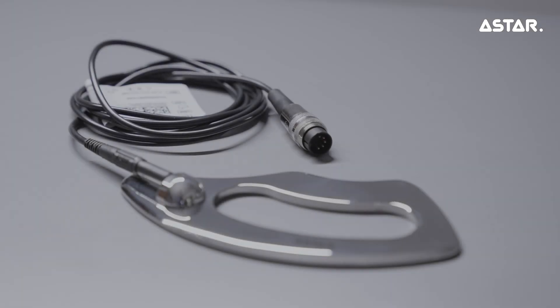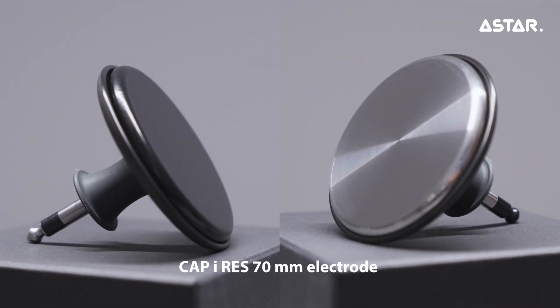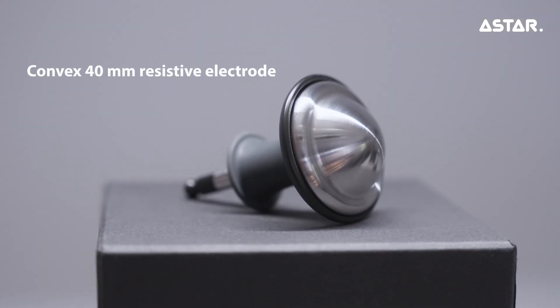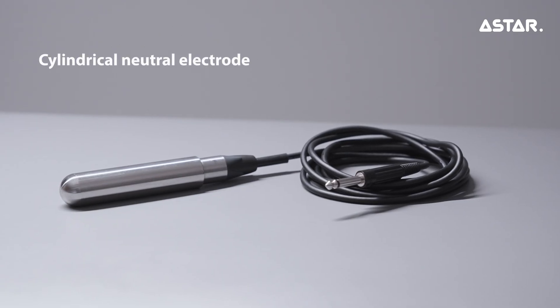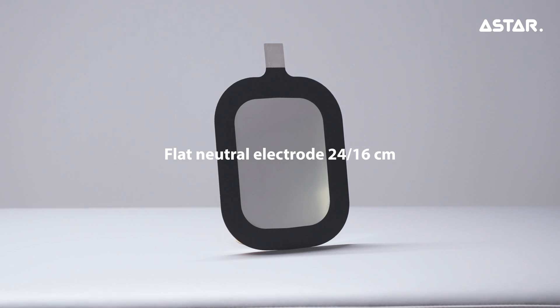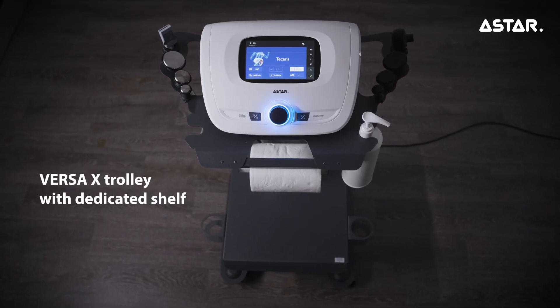Available optional equipment: IASTM KISS applicator with cable; Cap and RES 70mm electrode; Convex 40mm resistive electrode; Cylindrical neutral electrode; Flat neutral electrode 24x16cm; Straight applicator for active electrode.